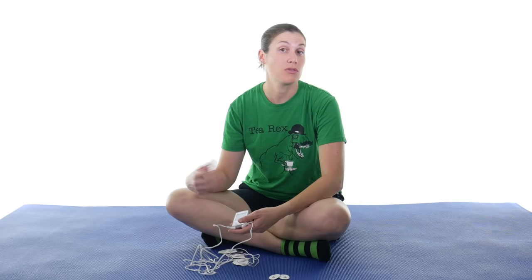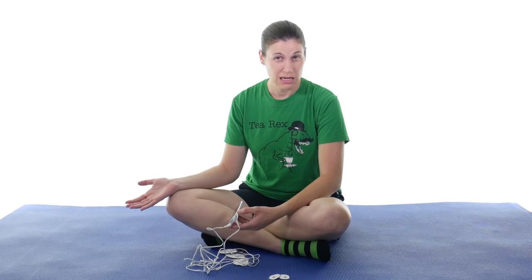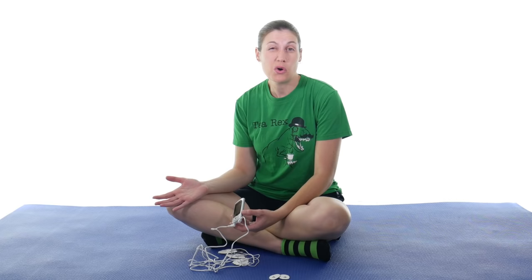What I really like about a TENS unit for pain relief is if you don't like taking pain medication, or maybe you have allergies or bad reactions to it, this is a good alternative. When I've had both my surgeries — shoulder and hip — maybe one or two days afterwards I'll take some pain medication, and then I'll just use a TENS unit and ice the rest of the time because it's enough to take away that pain. For most people it'll take that edge off just enough.